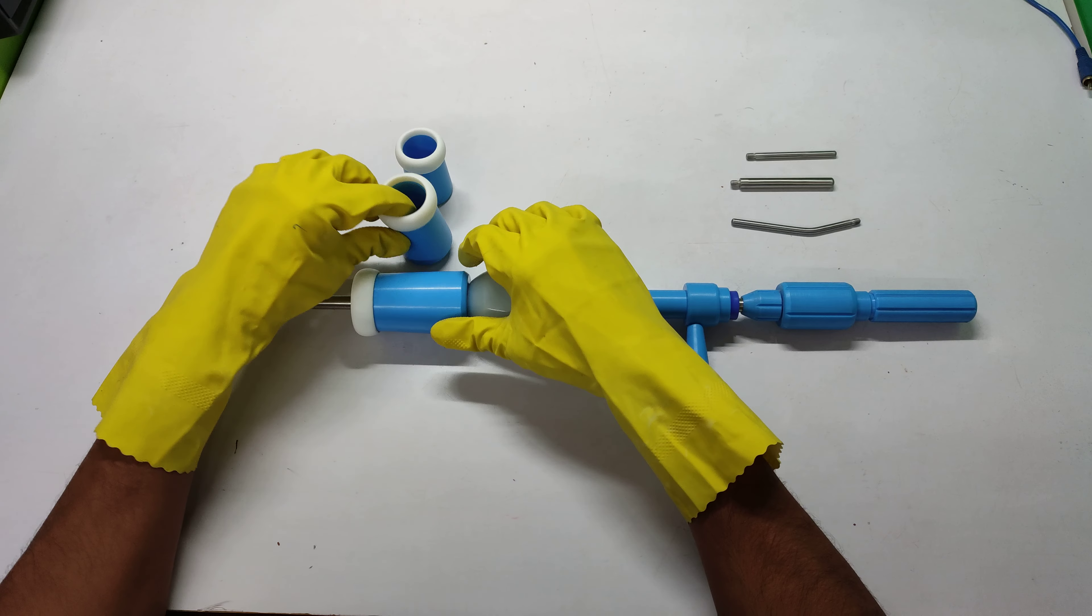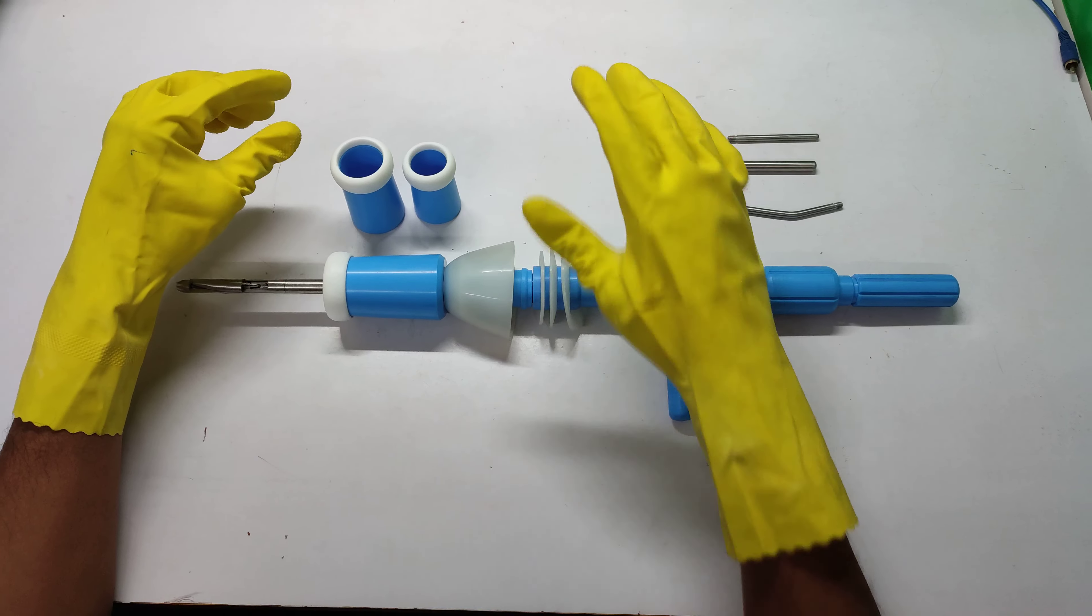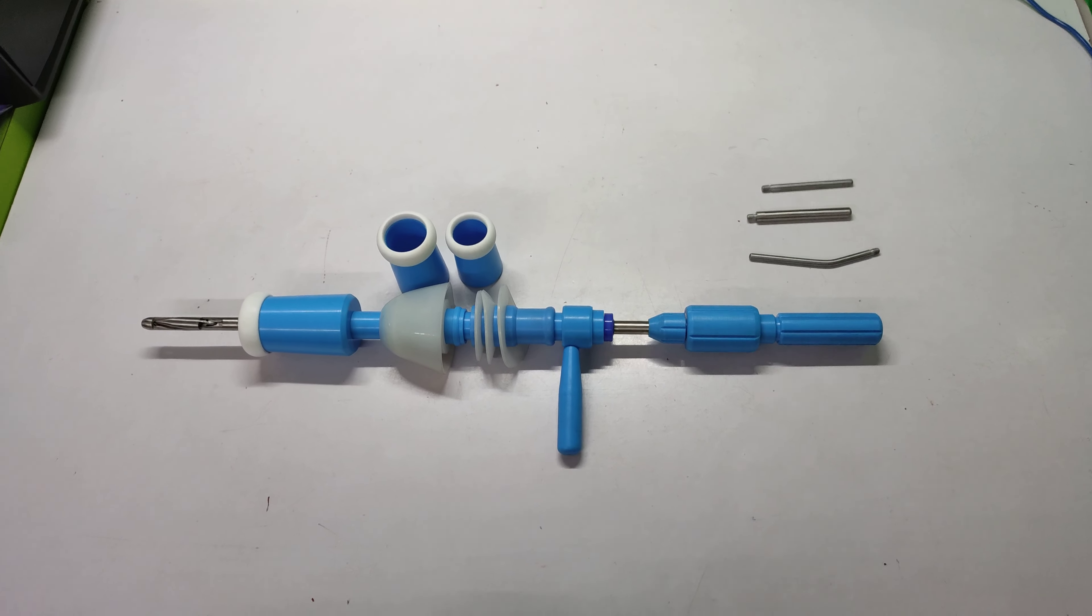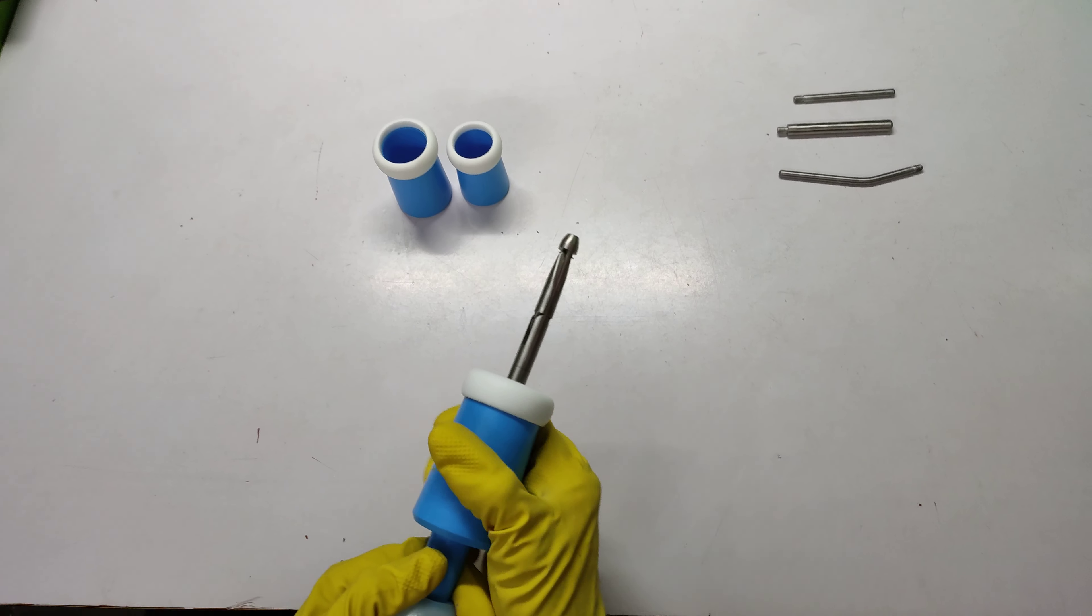This is large and this is medium and this is a small size cup. Now I am going to show you how to attach these different size cups. You have to look at this.